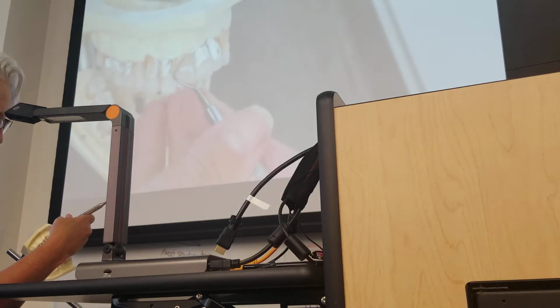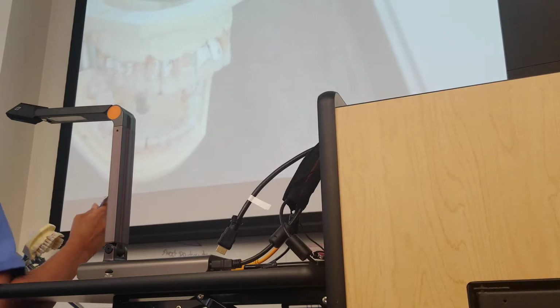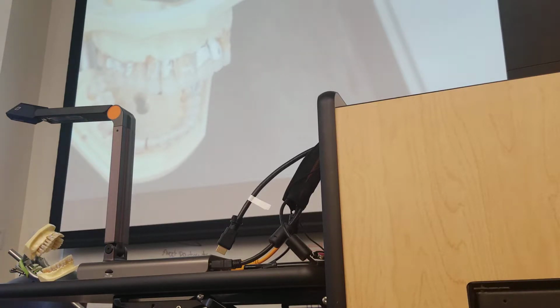So towards you? I had to double check. Just keep in mind that only the outer edge is used for anterior teeth. So if you have any questions about how to determine the outer edge, let me know now. So then you'd flip it for the away surfaces? Let's look at the lower shank. It's a difference, toe facing towards you.